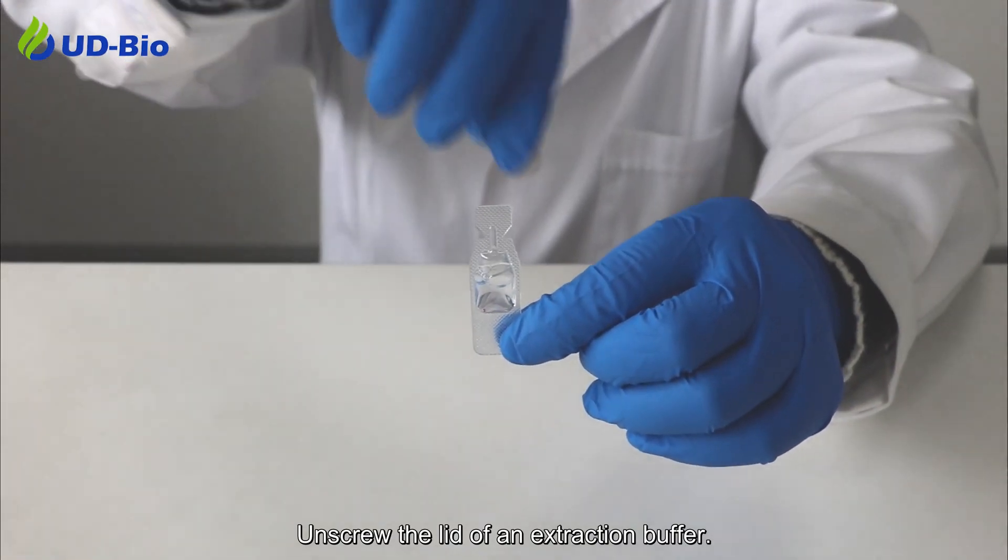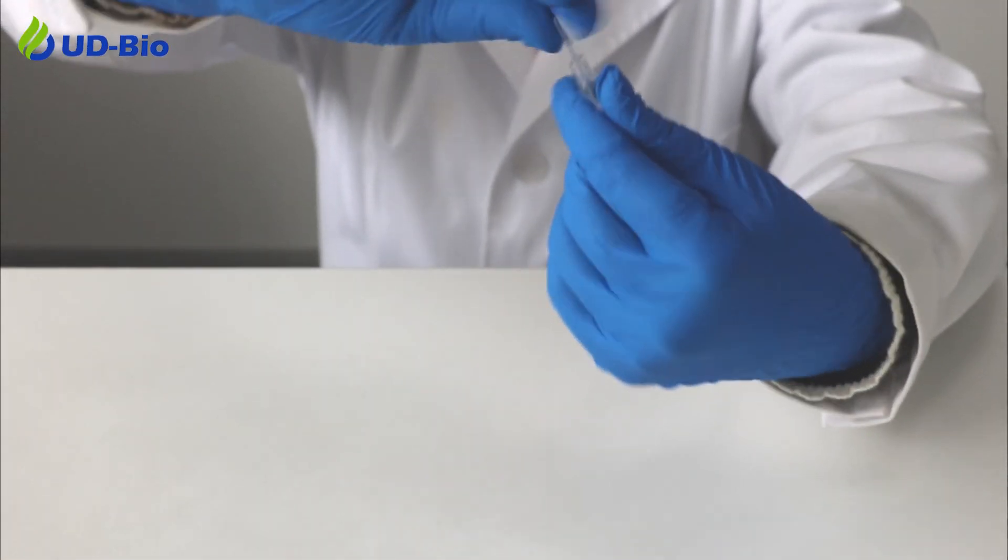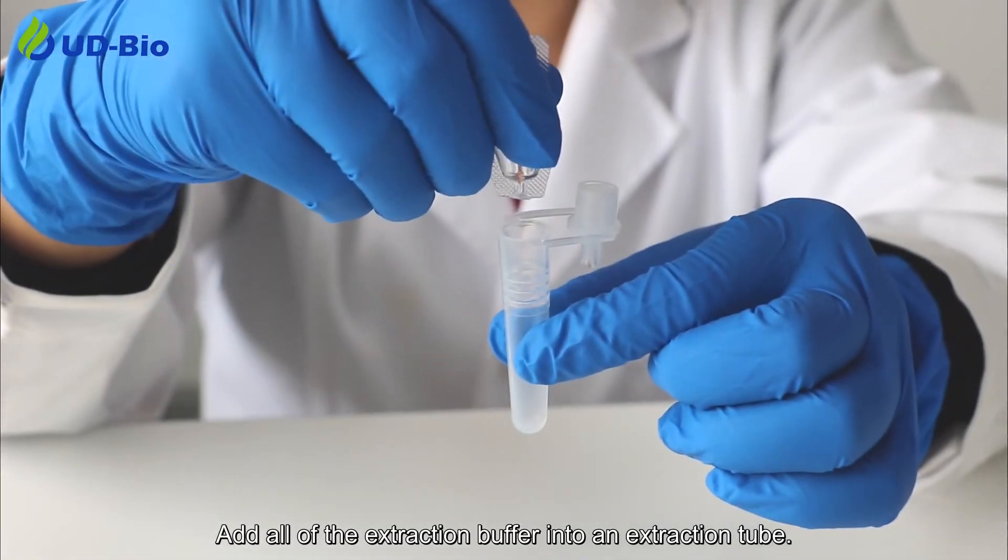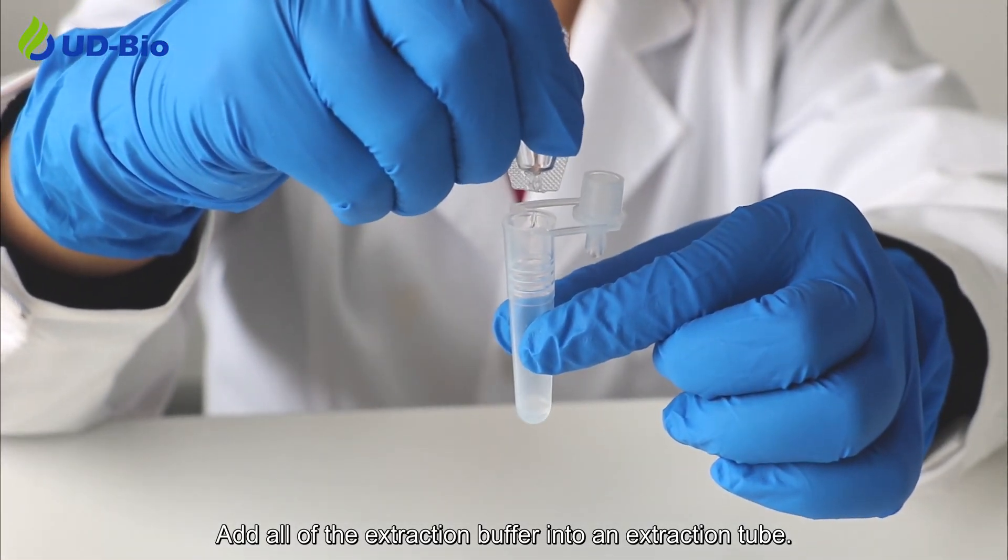Unscrew the lid of the extraction buffer. Add all of the extraction buffer into the extraction tube.